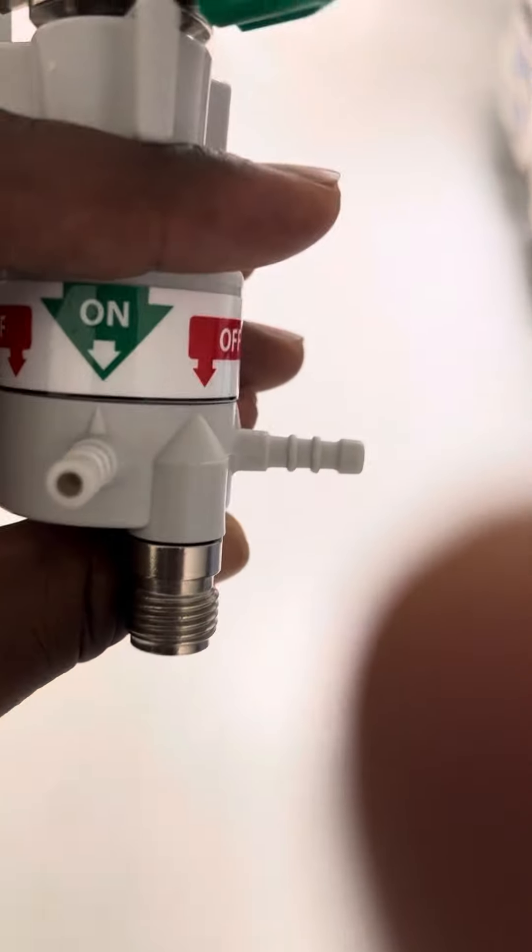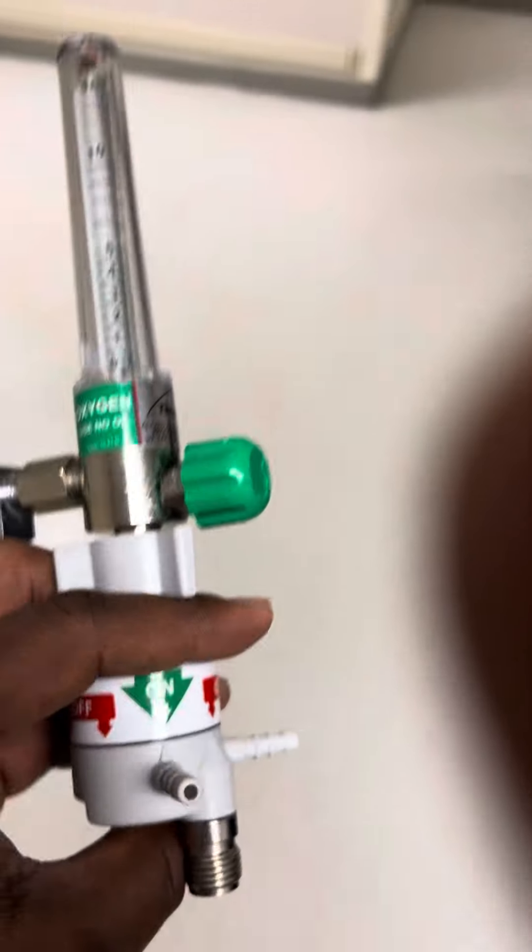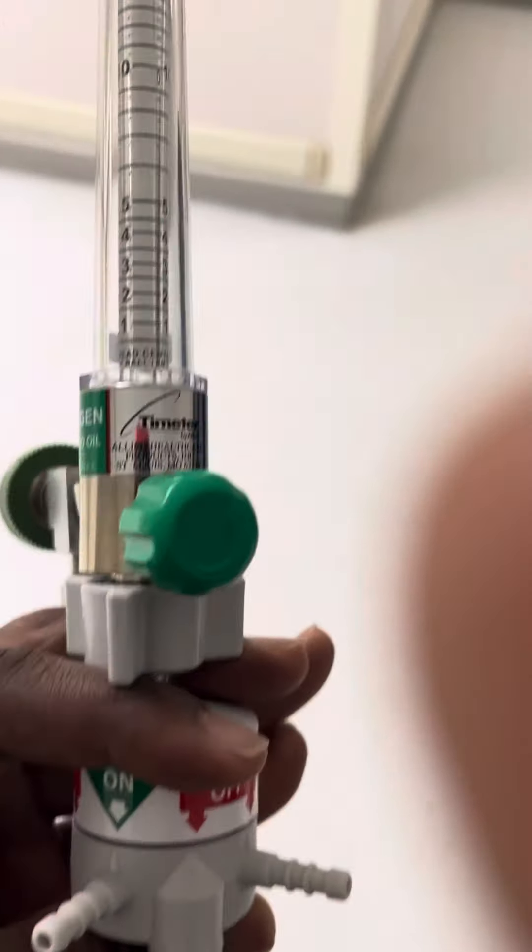They're pretty cool. Push this button and turn it — you see the arrow points to where it's going to be on that.